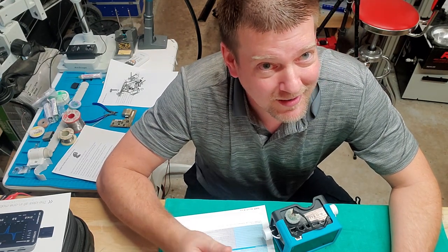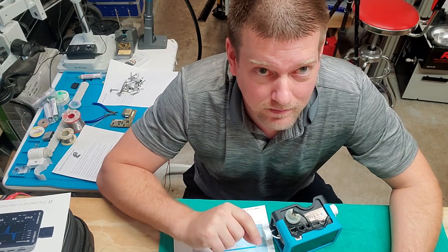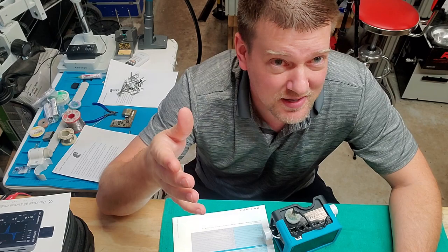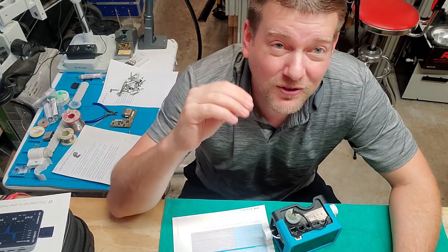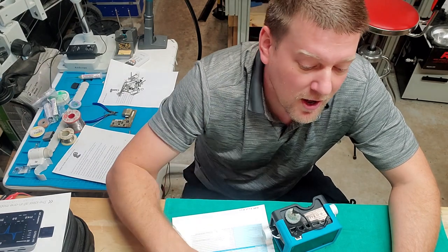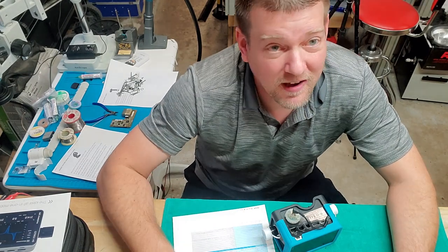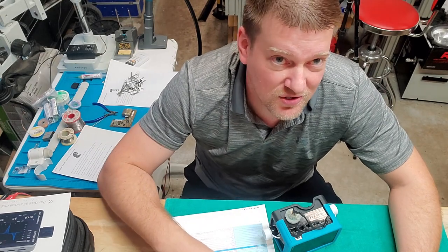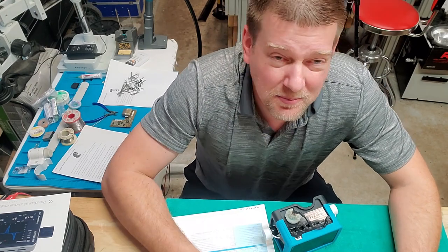Let that click — it does negative 14.5 PSI to 145 PSI. Atmospheric pressure is 14.7 PSI, so this device can almost pull a total vacuum. For those working on vacuum systems like gravity sterilizers, it can go down to negative 29.53 inches of mercury. Most vacuum gauges max out at negative 30 inches of mercury because that's one atmosphere — after that is total vacuum. And it goes all the way up to 145 PSI, meaning it can test line pressure and pneumatic tourniquets.